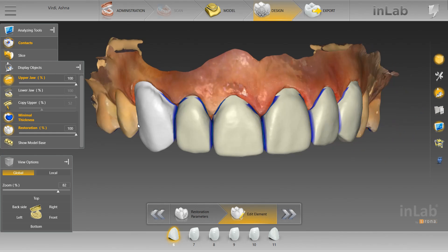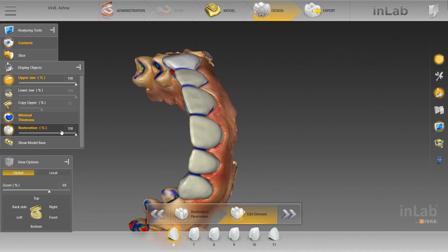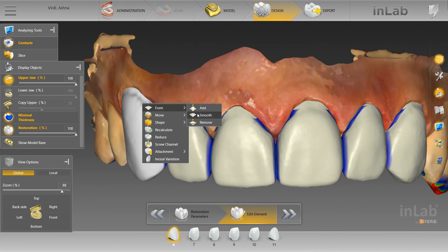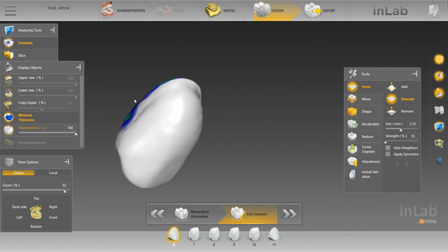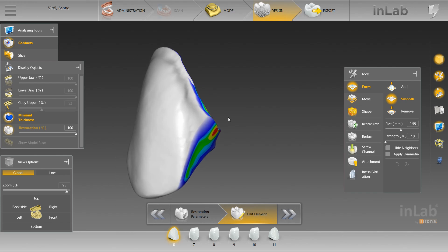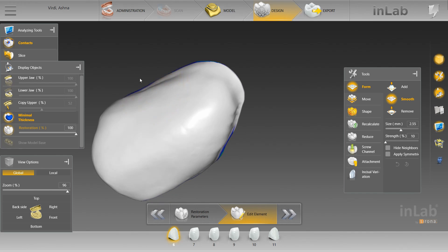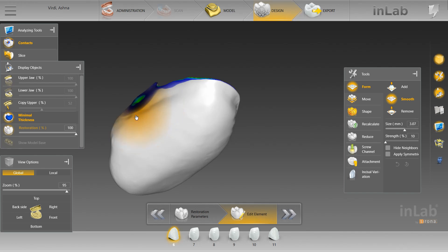First thing you're going to do is pretty much just evaluate what you've got to work with. The software didn't do a terrible job at copying this, but it could have been better. So let's start out with the form tool, go over to smooth, and let's work around the margins — take away the jaw and work around the margins just to start out with a clean slate without these ripples. Also when doing this, don't have your strength up all that high. You want control when you're working around these margins, so keep the strength as low as it can go and just slowly work around.